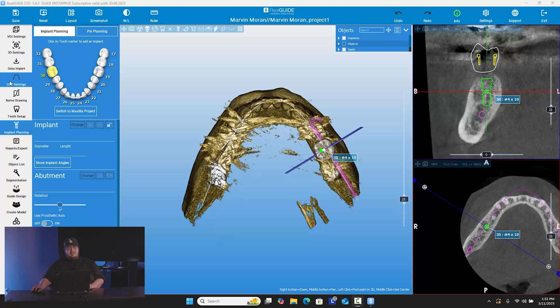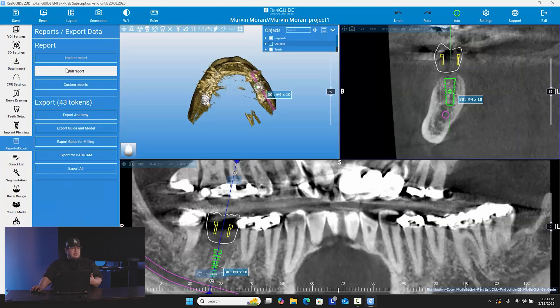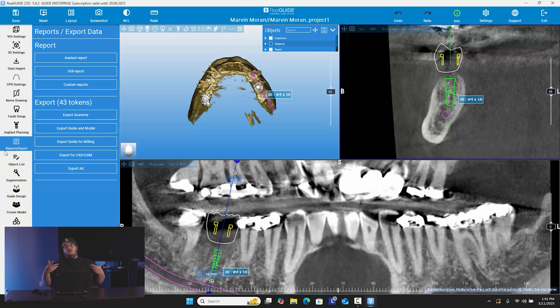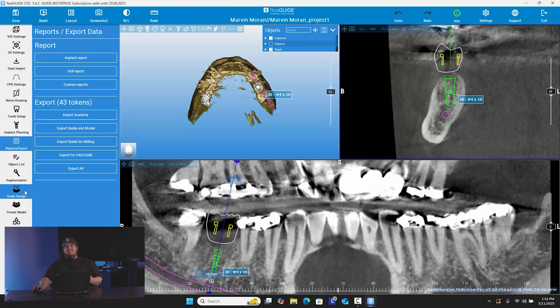Right here, we've gone through all the steps on the left side. I've shown what happens when we're on reports — kind of letting you know and go over the different reports that you can make with this software — and then of course the exporting, which I'll show you once we're done making the guide itself. Object list segmentation is if you're going to actually segment the bone and turn the bone into an STL object, for example if you're doing a bone reduction, or some doctors may want the bone printed out and use it for a mock-up surgery at their office. But for us, we're going to go straight down to guide design, and that step is exactly what it's labeled — it is just the making of the guide itself.